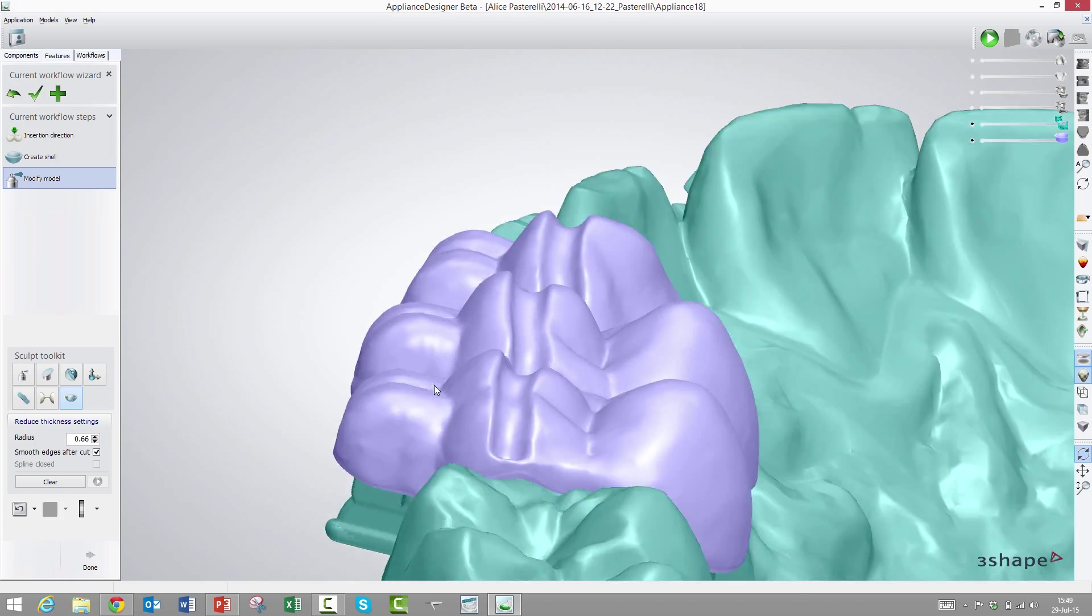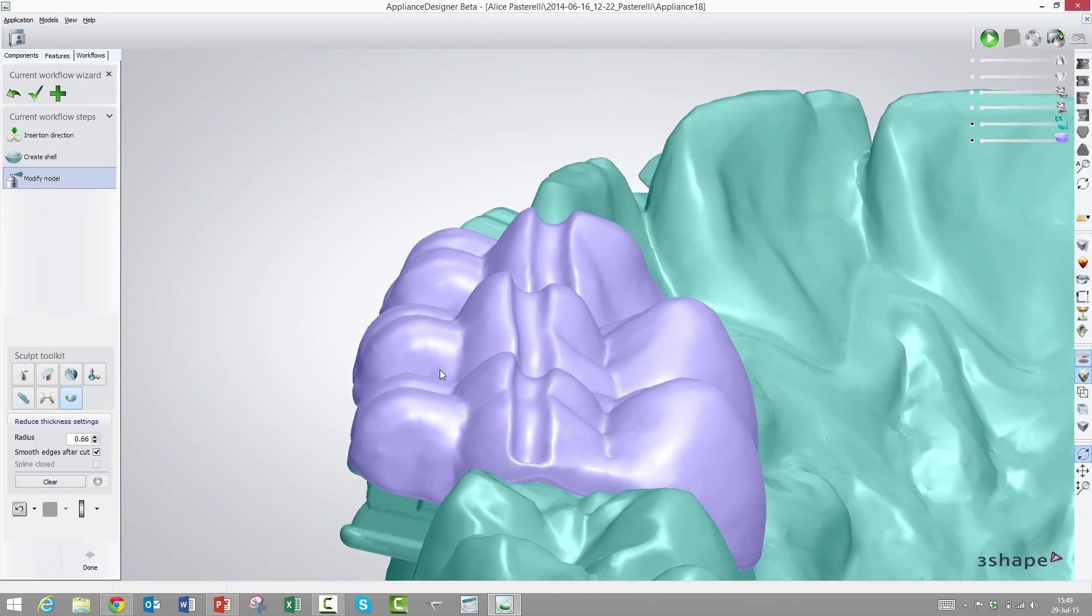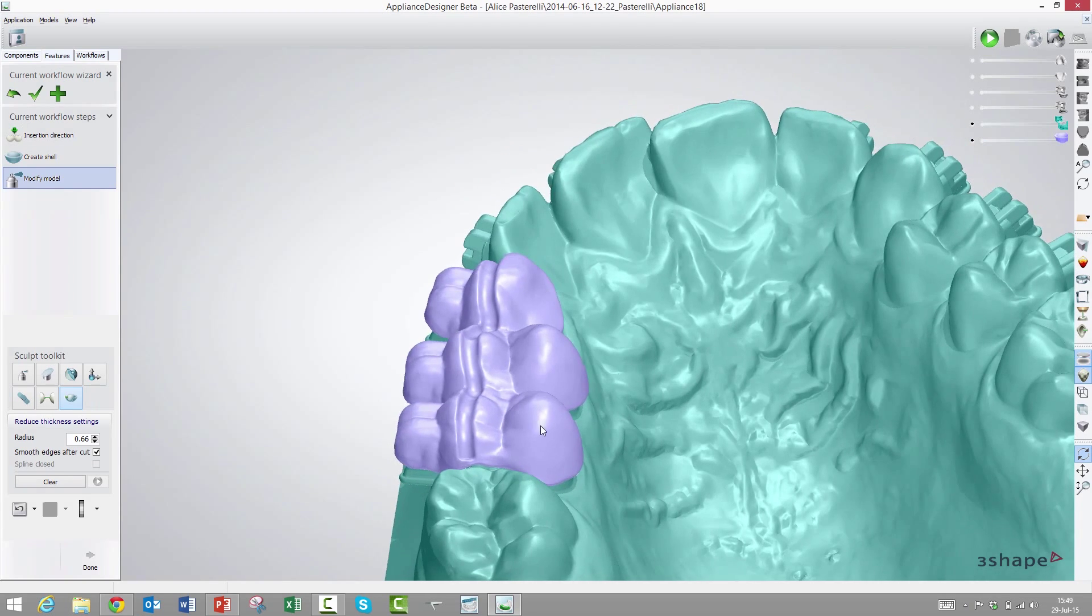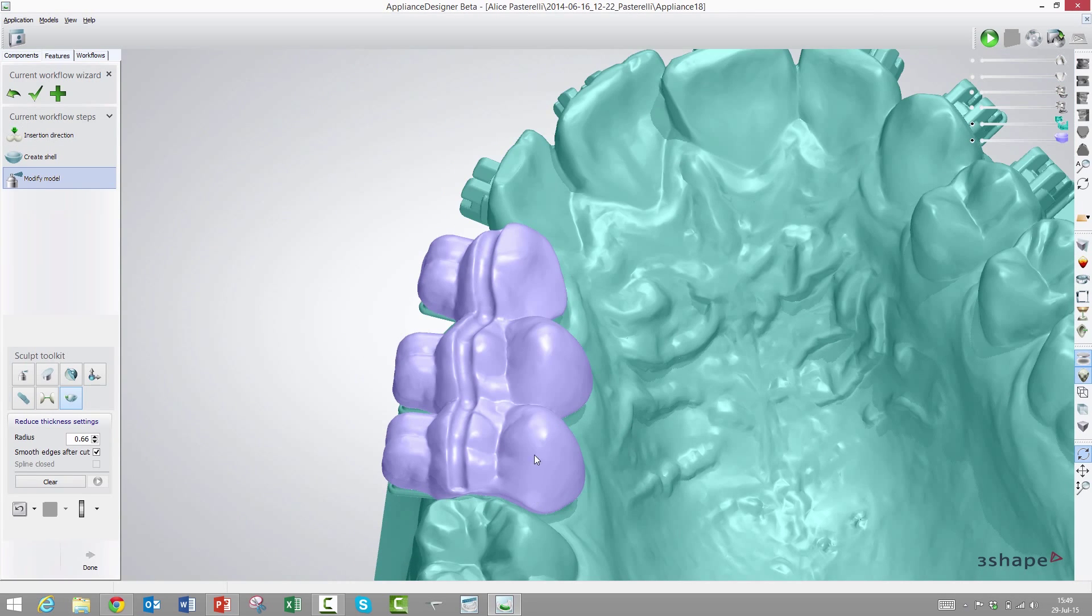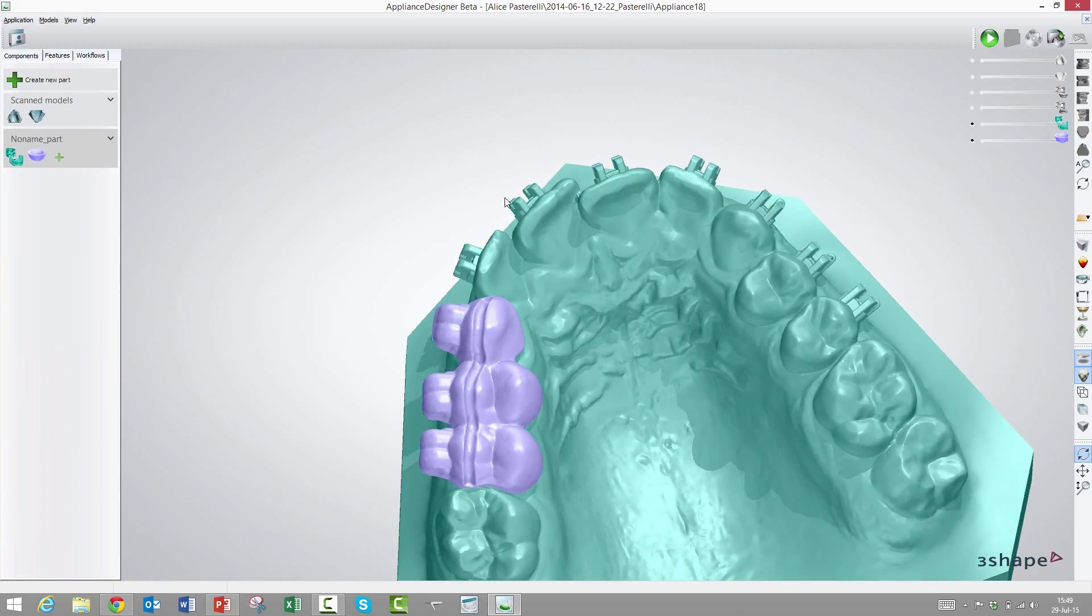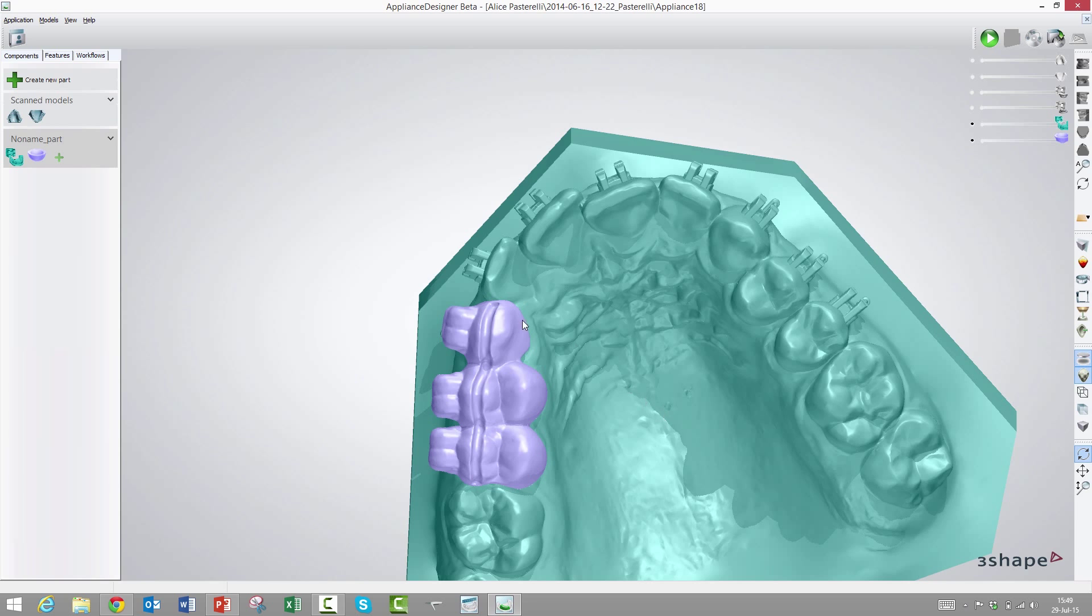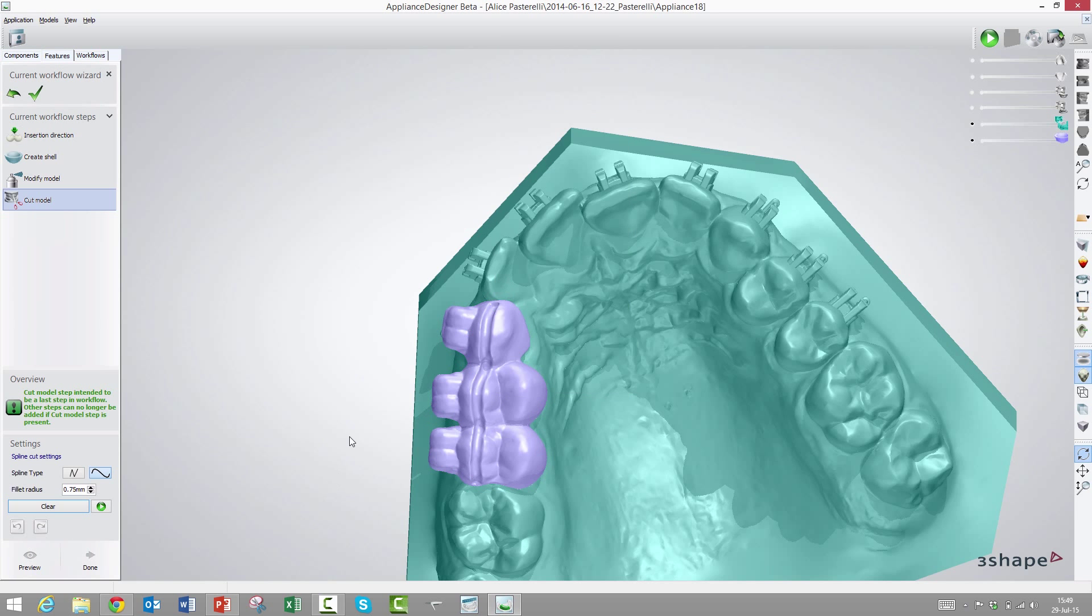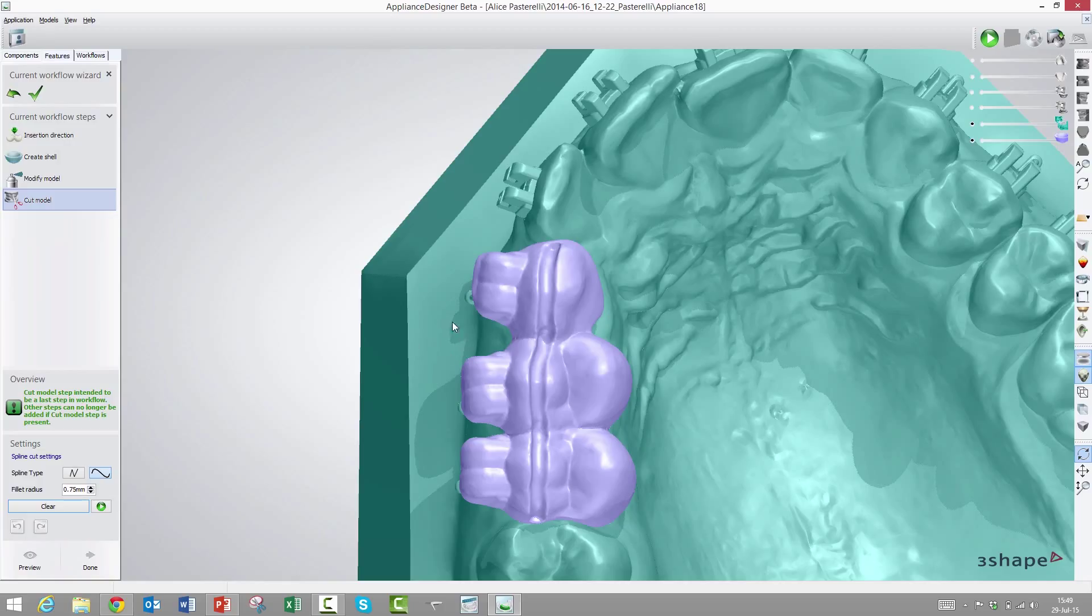Once you've clicked on the last one, double-click and it will visualize this. This creates a tube of sorts and that would be subtracted. If you don't put enough control points, it will tunnel inside the model. Then you'll just grab one of these control points and make sure it goes outside the model again. Once you are certain it's outside, press play and now it will subtract this tube from the model. You can define the radius here.